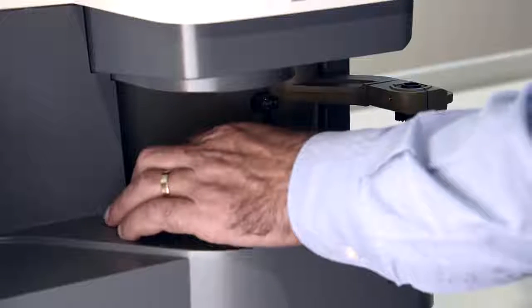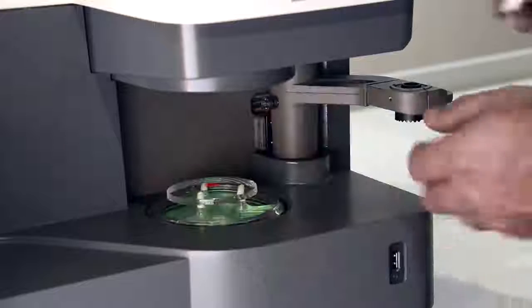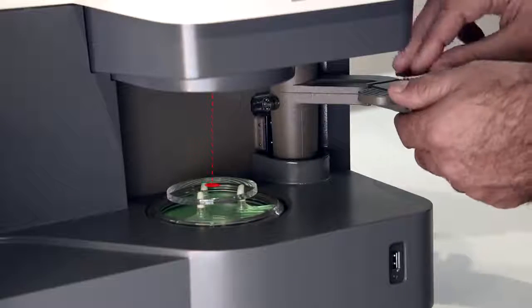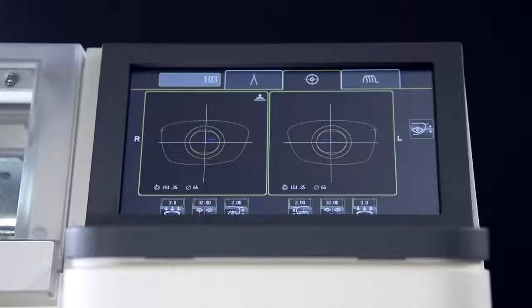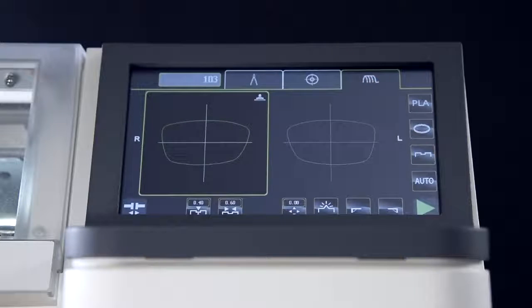Despite blocking on the gravity center, we still respect all centration data to ensure proper placement of optical centers and reference points. Once in the edger, the lens is edged around the gravity center.